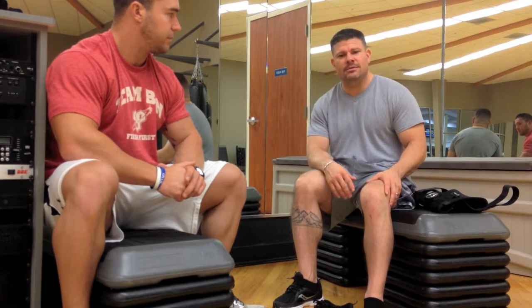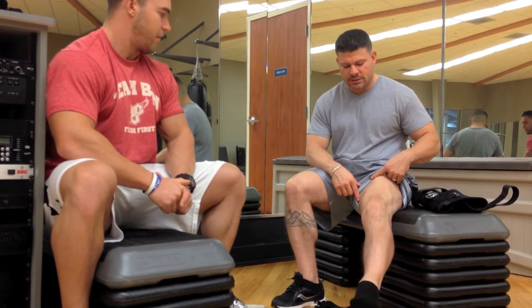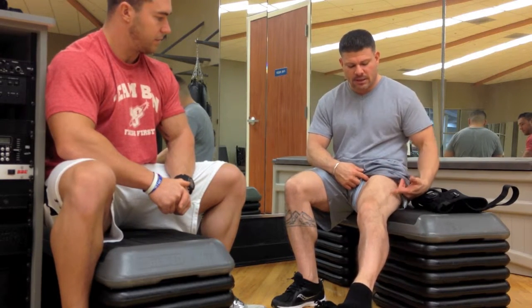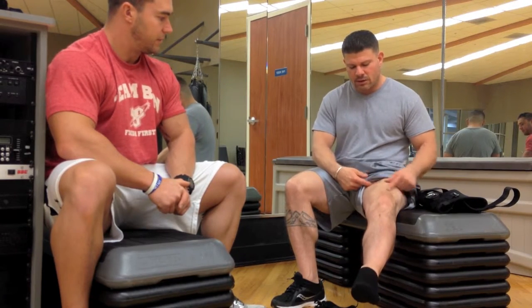So as of yesterday, I ended at the stimulus dial at three quarters of the way up. The frequency is still down, so the contractions happen probably every four seconds for about five seconds, really making it simulate like I'm actually contracting. Now you can actually see from where we began — I tried to create a muscle contraction in the leg, but now you can actually see the vastus lateralis contracting.